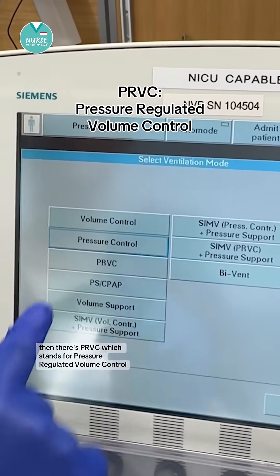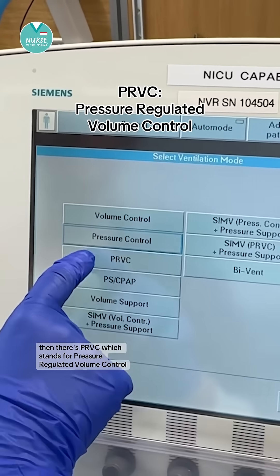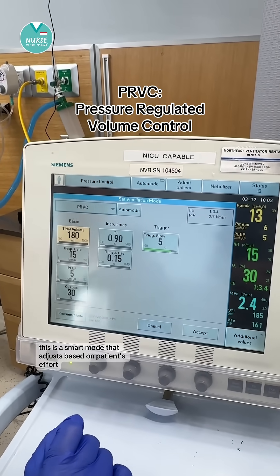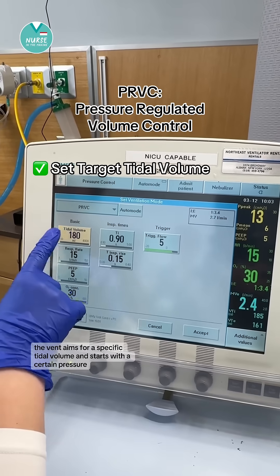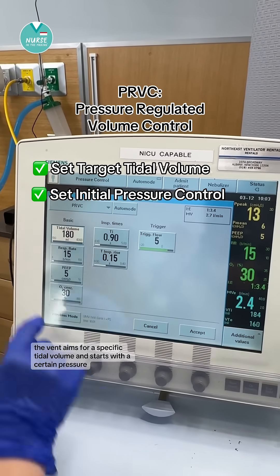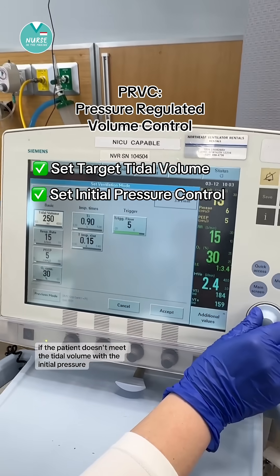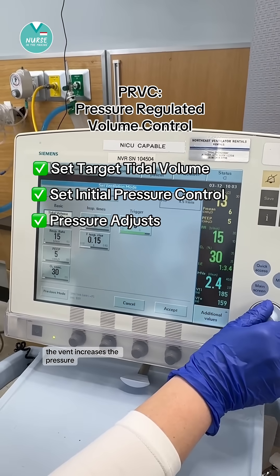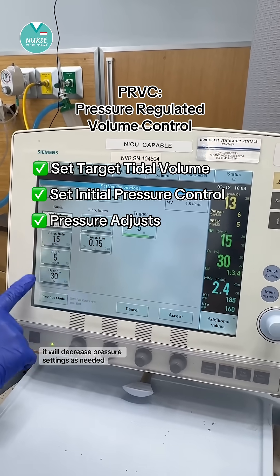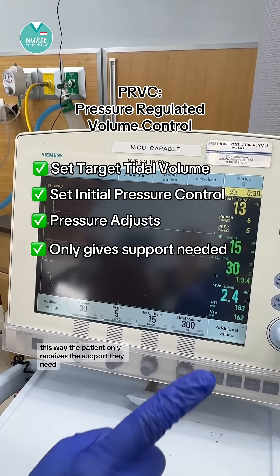Then there's PRVC, which stands for Pressure Regulated Volume Control. This is a smart mode that adjusts based on the patient's effort. The vent aims for a specific tidal volume and starts with a certain pressure. If the patient doesn't meet the tidal volume with the initial pressure, the vent increases the pressure, or decreases pressure settings as needed. This way, the patient only receives the support they need.